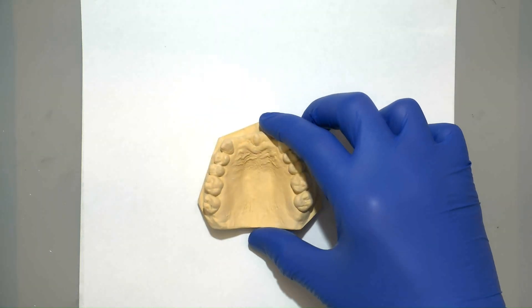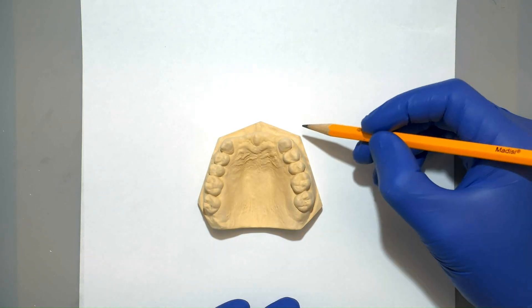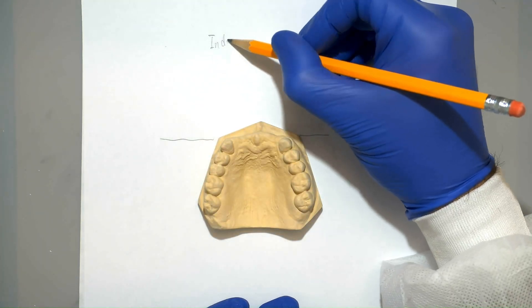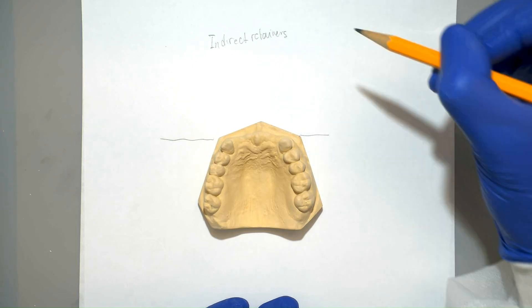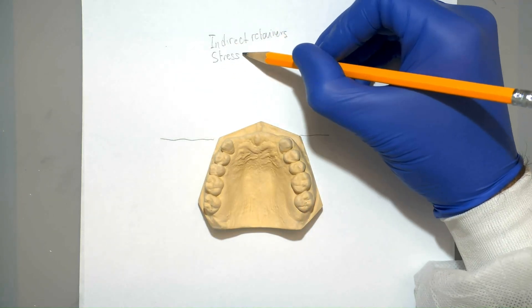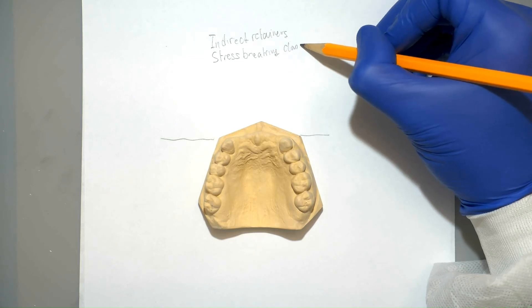Before we start, it's important to have a plan. Generally speaking, long span class 4s will have a fulcrum line on their anterior most abutment teeth, which means we'll need indirect retainers there and we'll need stress-breaking clasps.